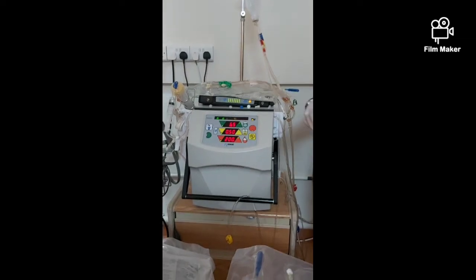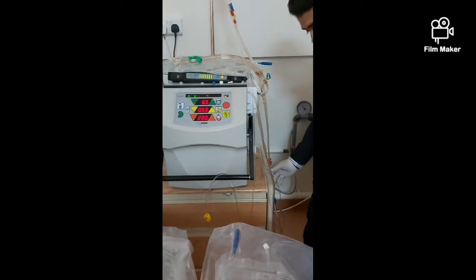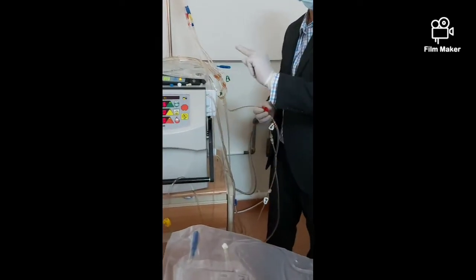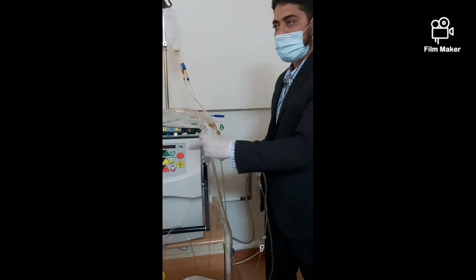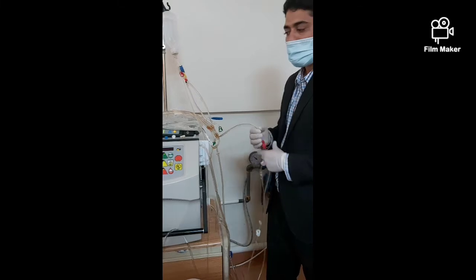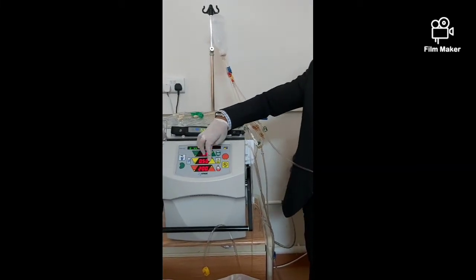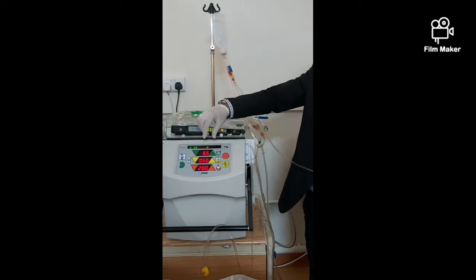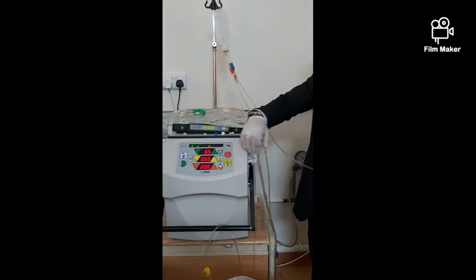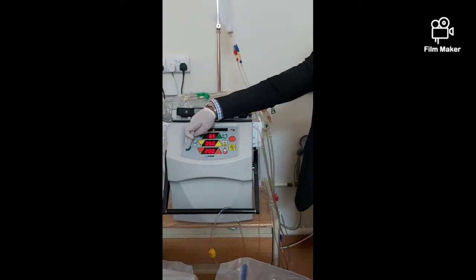To summarize: first, open the white clamp and let the saline go. Open the saline and close the red clamp — let it run like that. After finishing, stop the pump. Take both patient lines and connect them to the recirculator, then start. The machine is running but set to zero-zero with a long press — it will stay zero-zero until the patient comes back. When the patient comes back, stop the pump, take both lines, connect to the patient, and start.